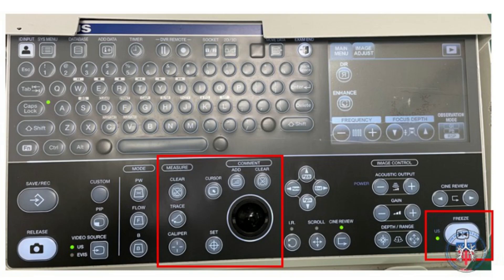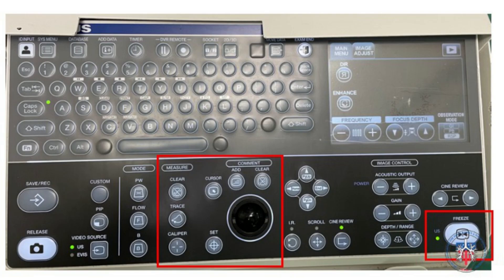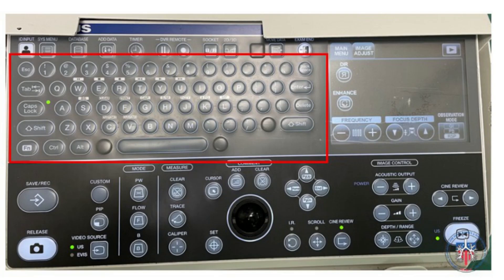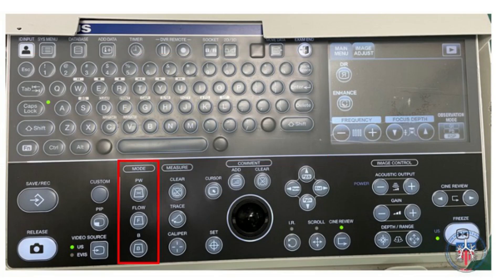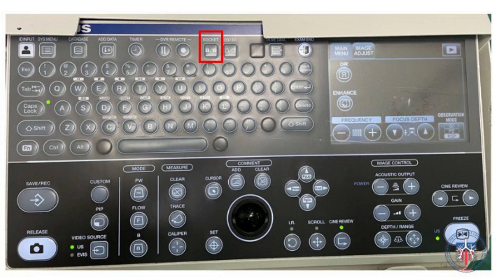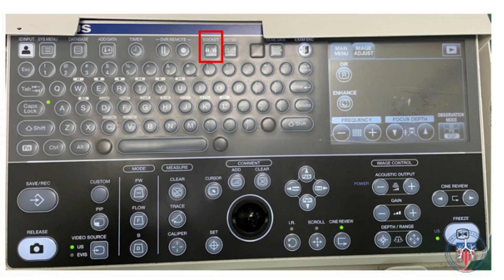With this system you can use calipers to accurately measure pathology, in addition to adding comments to your images. The main keyboard can be used to free-type all annotations and other documentation. In this area you can see how a provider can easily change between different ultrasound modes. The last function seen on the keyboard is the socket button, which allows a provider to switch from convex EBUS to radial EBUS.